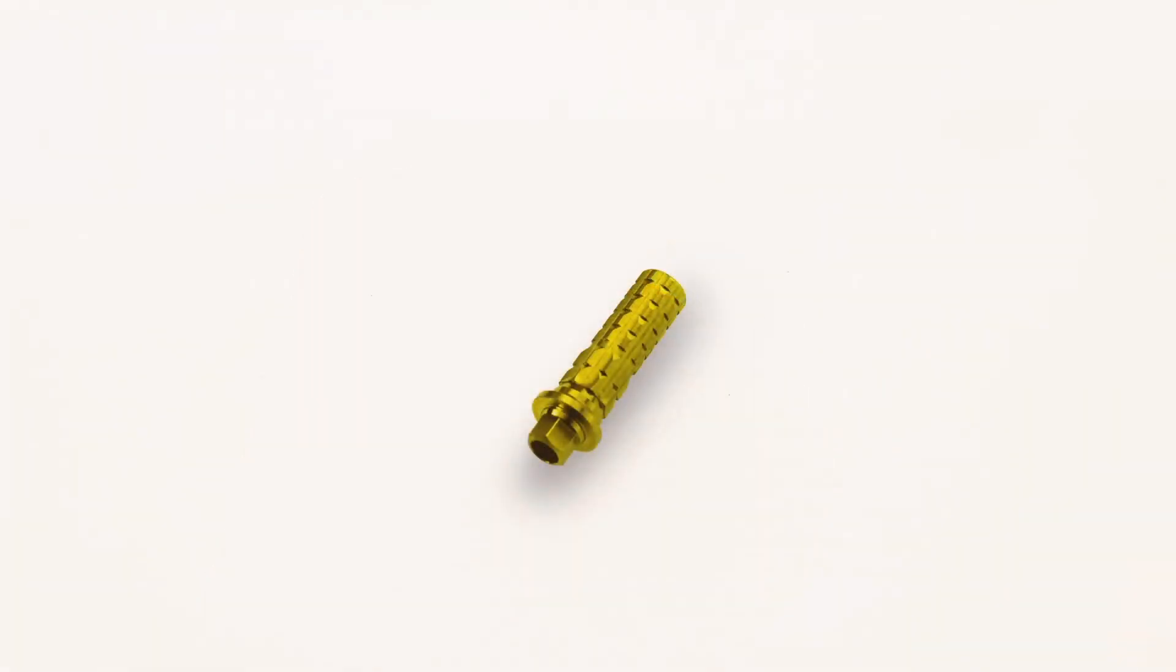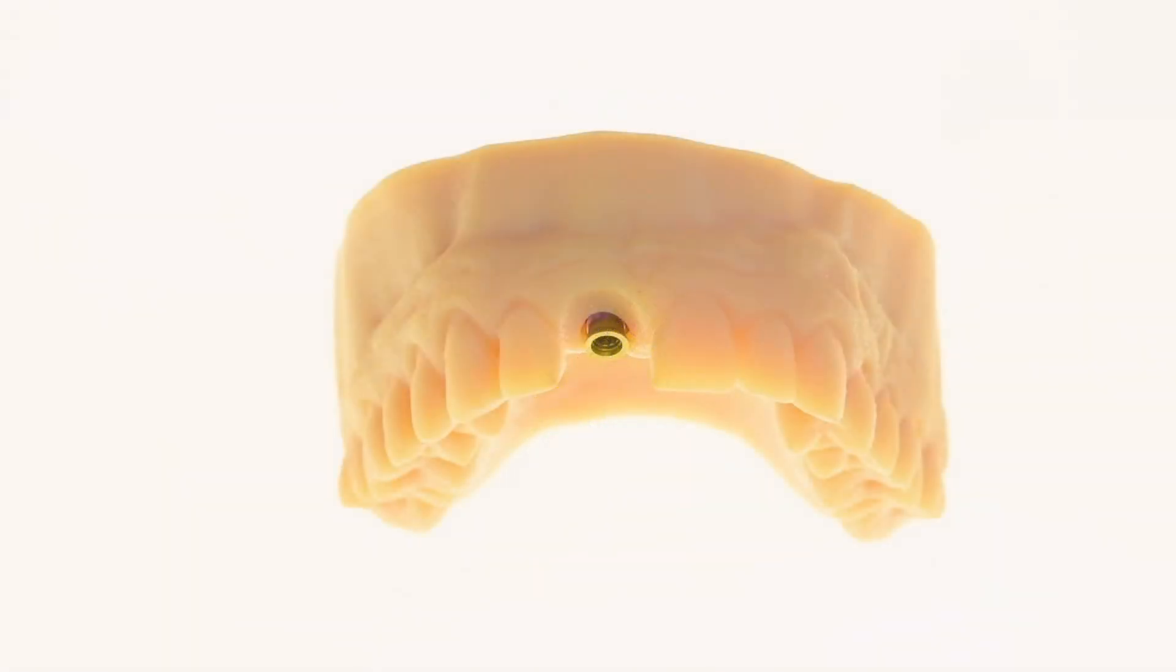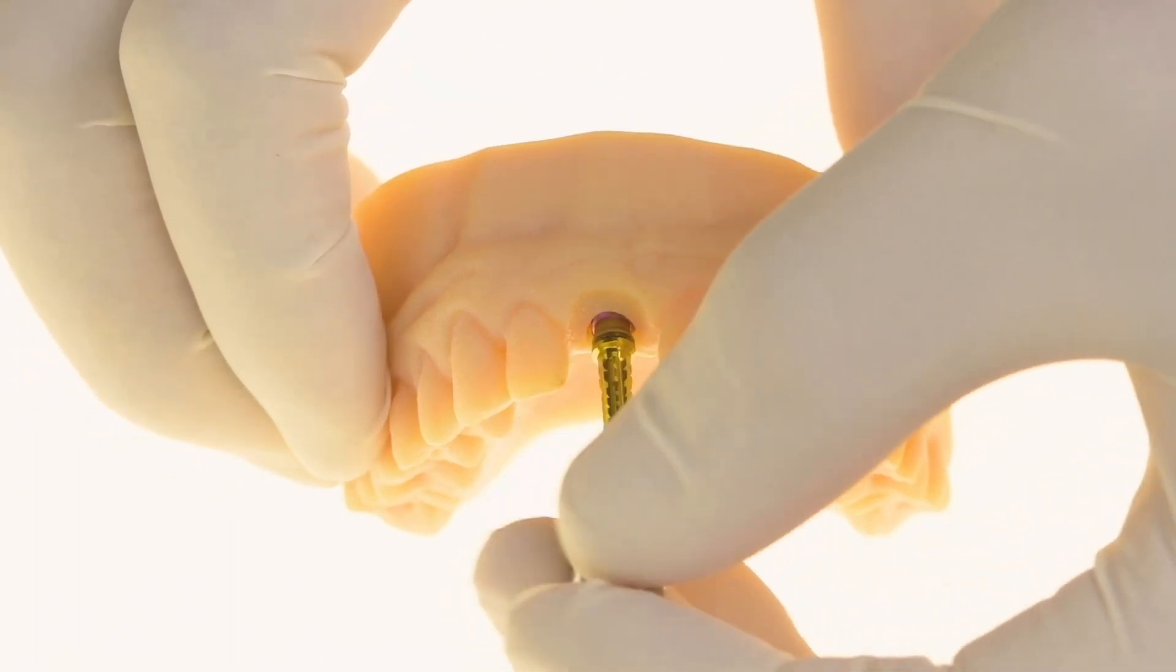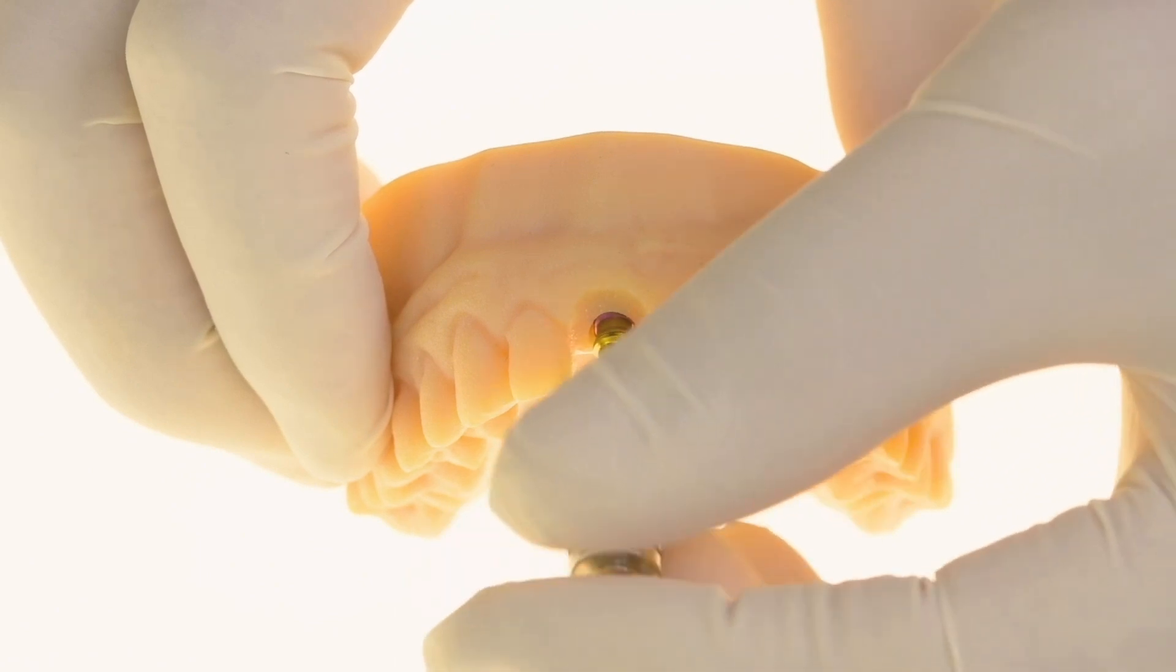The Connect system provides an added value in the smile zone due to the fact that it keeps the mucosa at the maximum volume and allows natural integration of the emerging crown.